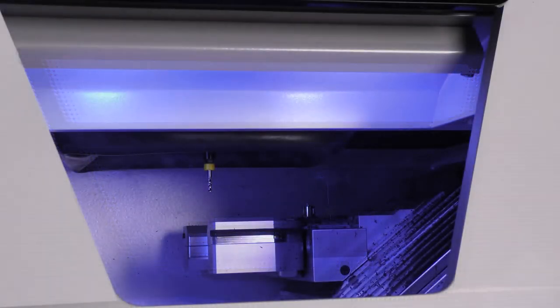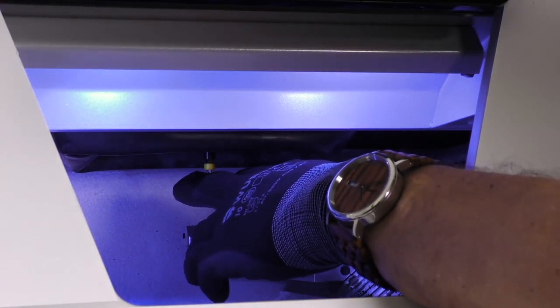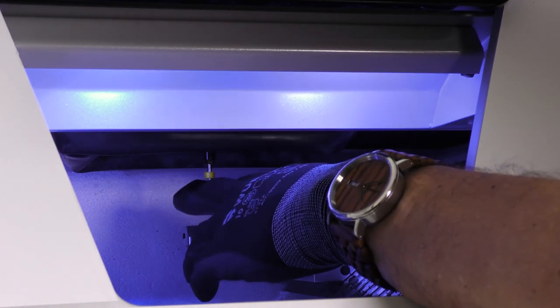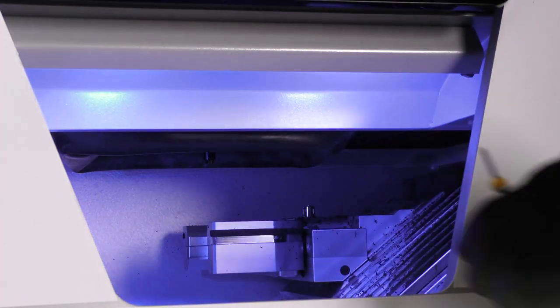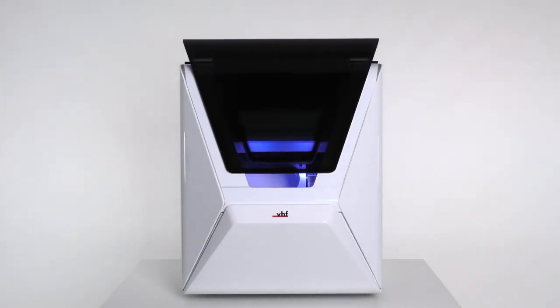After the drilling process is completed, the spindle moves to the tool change position and an on-screen guide opens. Open the working chamber door and hold the tool in the collet chuck in place. Confirm the current message in the on-screen guide. The collet chuck opens — remove the tool from the collet chuck. Confirm the current message in the on-screen guide and close the working chamber door.